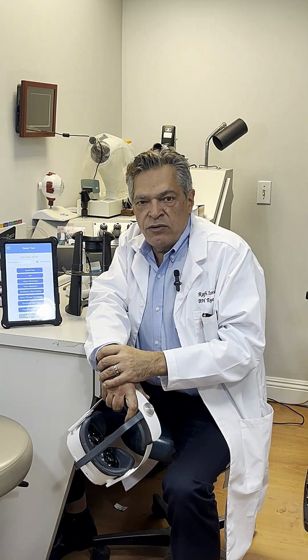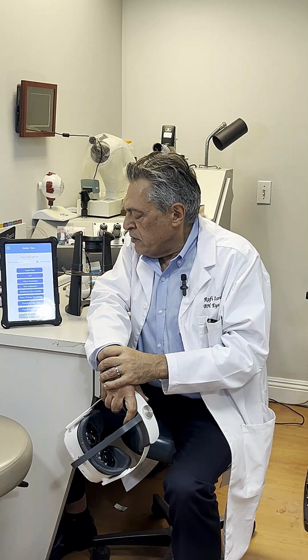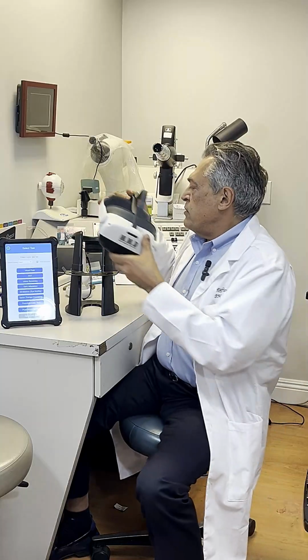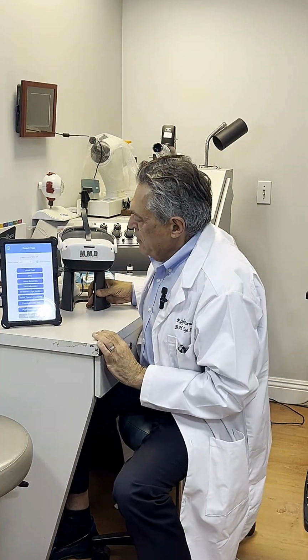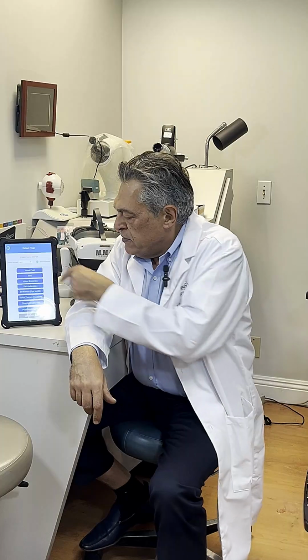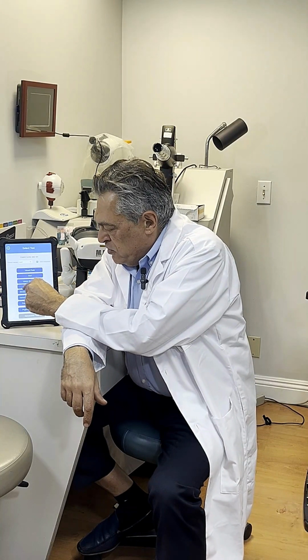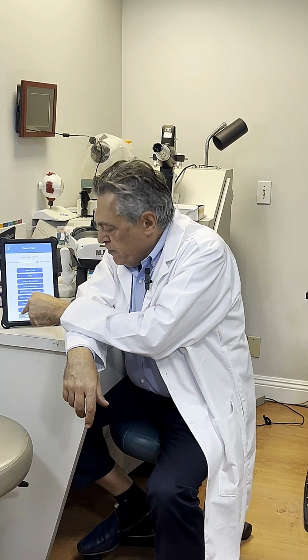So why do you need all of this? Well, first of all, for many of these, there is actually a code that you can use to bill insurance. But if you're like me and experience low payment from insurance, you should not be saying that you don't need a device, because you still need a device. For example, the number one use that I have for the device in addition to the visual field is both the strabismus monitoring and the pupillary response test.